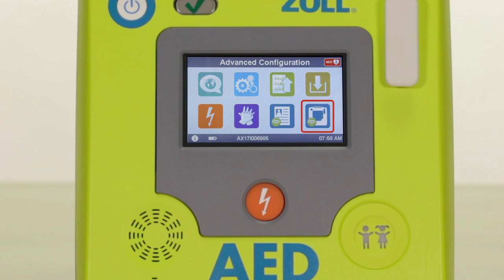The blue icon with the AED3 and Wi-Fi waves is the Wi-Fi setup for your AED program management. If you have AED program management and wish to transmit your device readiness status over Wi-Fi automatically, this is where you would configure it. Note that automatic transmission of device readiness is not available for all program management software products. Contact the authorized Zoll distributor you purchased your AED3 from for information regarding compatible program management software products.